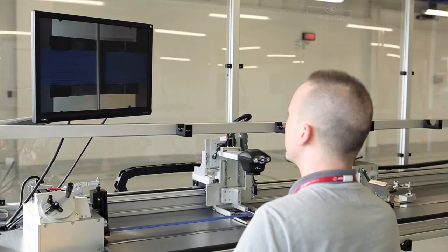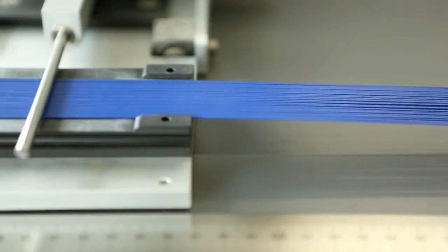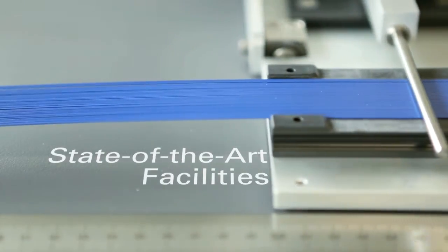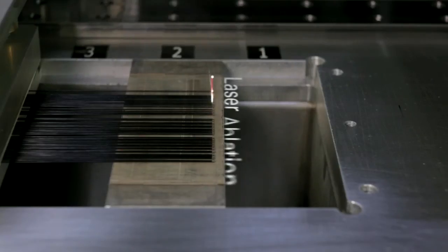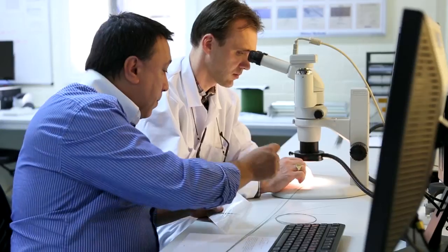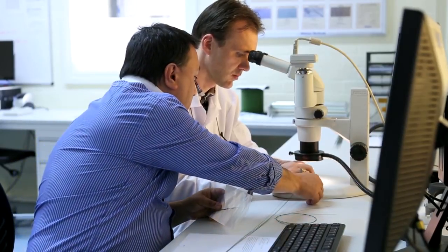Our hypotube and coated wire components are prepared and finished at our own state-of-the-art manufacturing facilities using the latest technologies, including laser cutting and laser ablation, so every product meets your most exacting specifications.